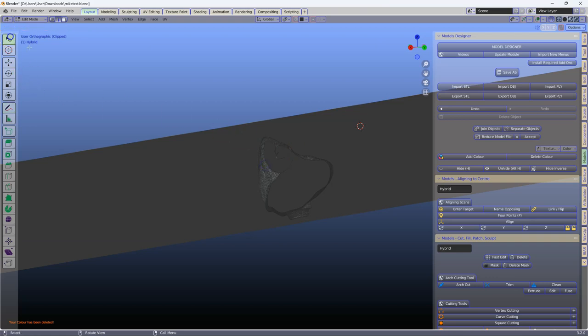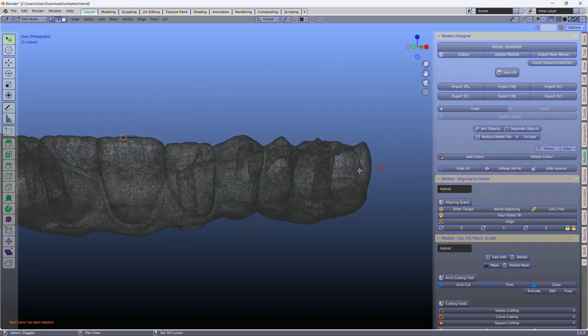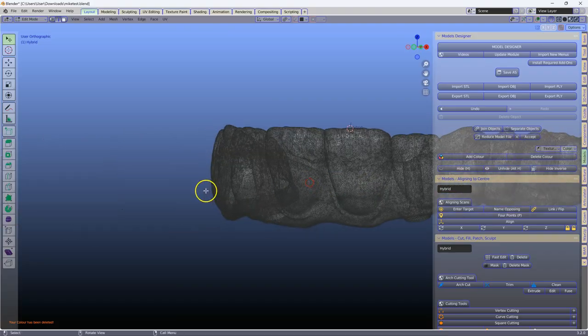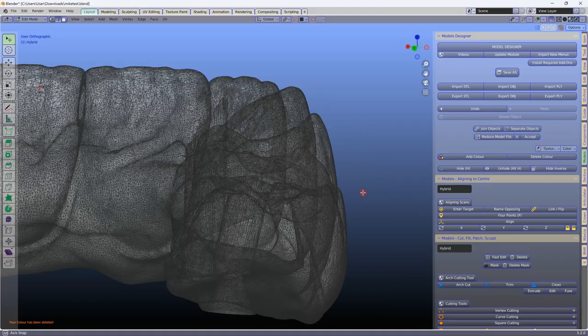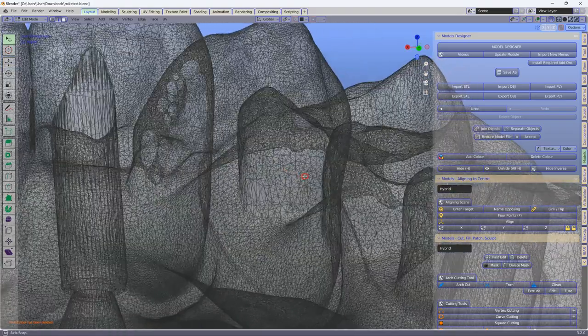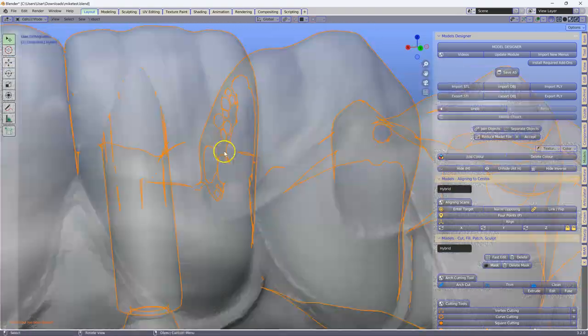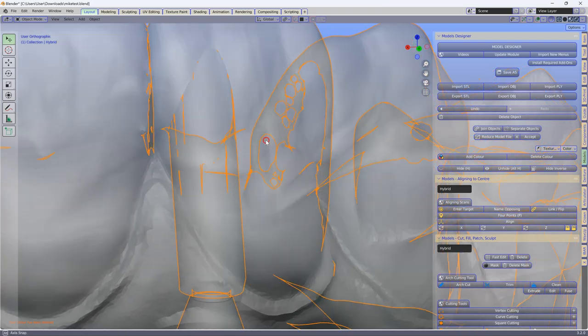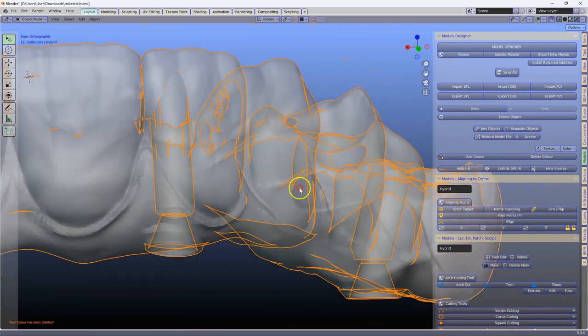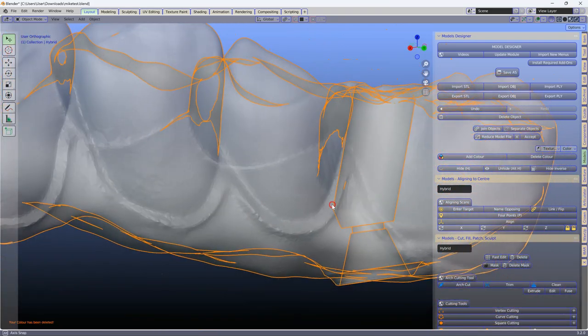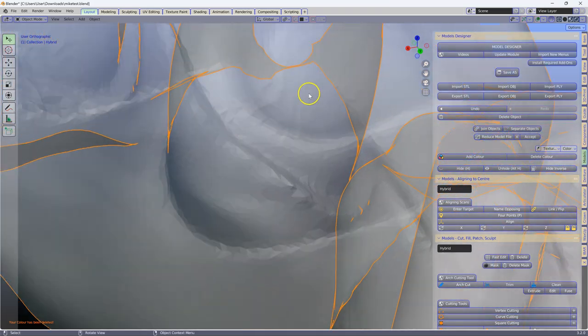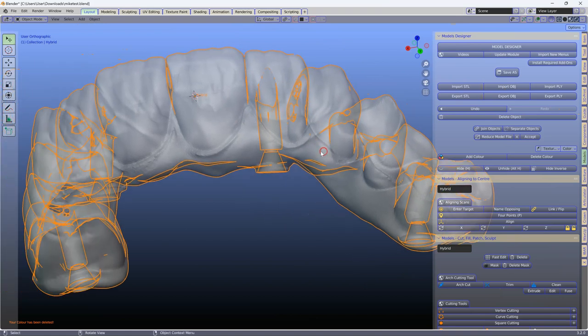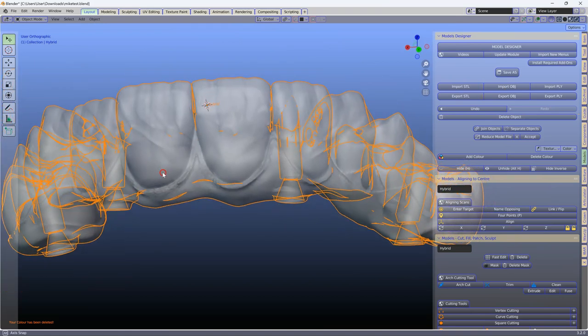Let us have a look at the other side. Again, over here we can see there's more stuff happening on the inside. So this is not really suitable to create an i-bar. Even over here, we've got another strand running from one side to the other side. Now we need to fix this mesh before we even engage in cutting an i-bar.